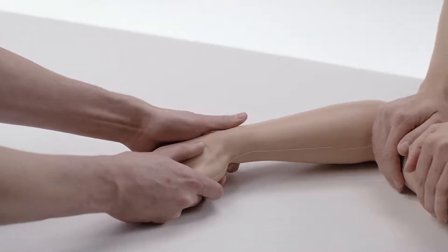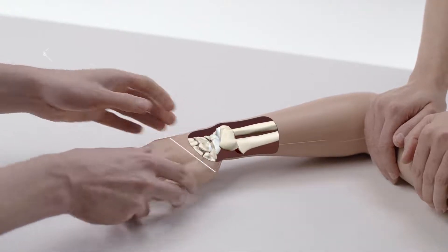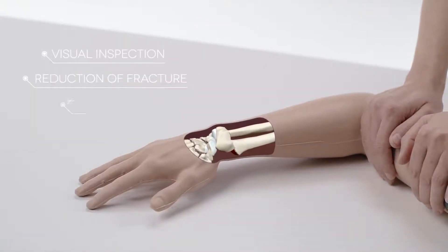Designed in collaboration with clinicians, the model allows for visual inspection, reduction of the fracture, and plastering.